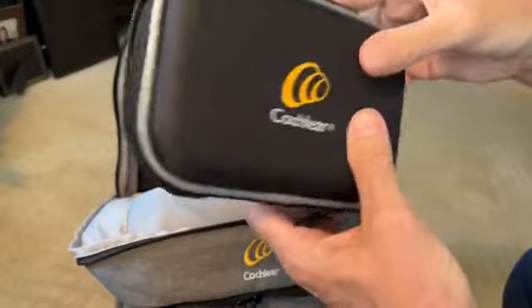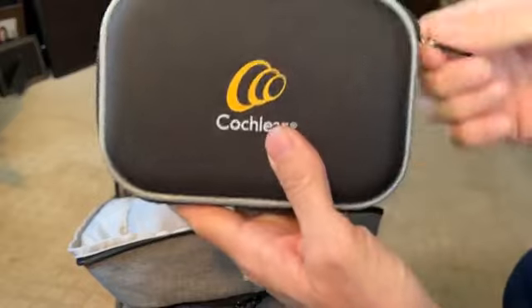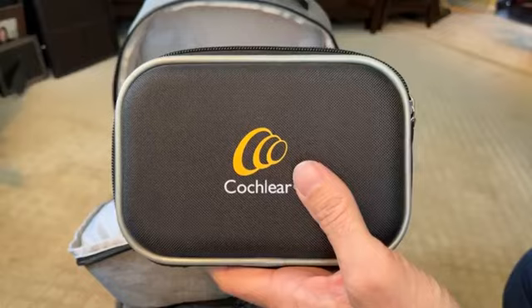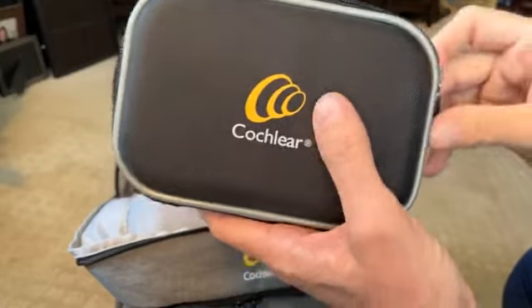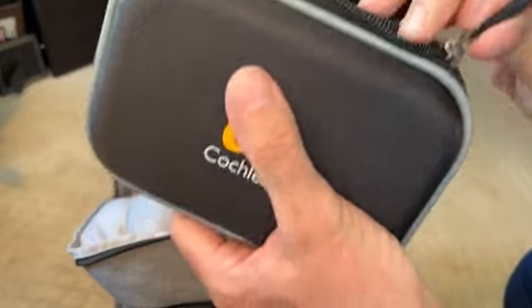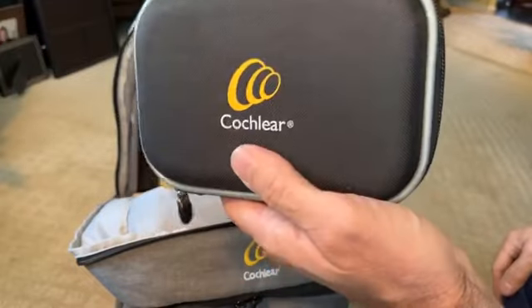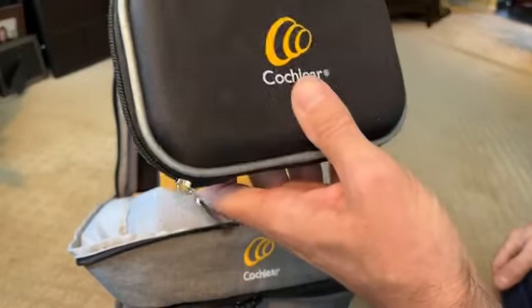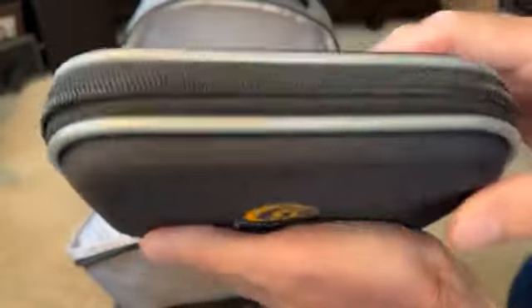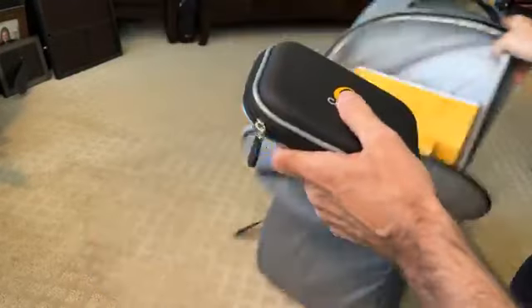She let me know that they give you five years — if you just flat out lose your implant for whatever reason, they'll replace it for free for the first five years. Damage it, lose it, go swimming, whatever — if it comes off and you can't find your implant, they'll replace it for free. So that's your initial little carry case for your batteries and tools to clean it.